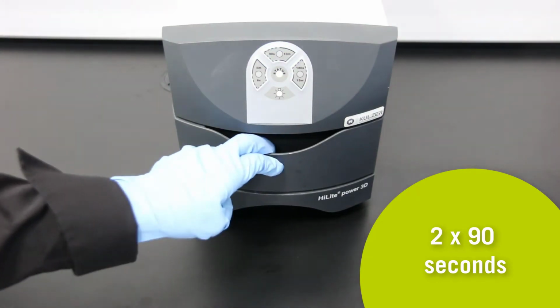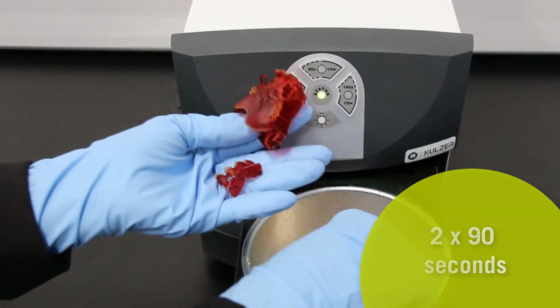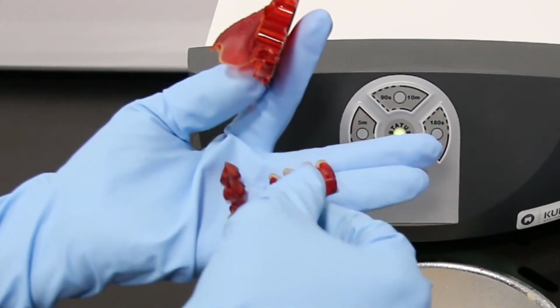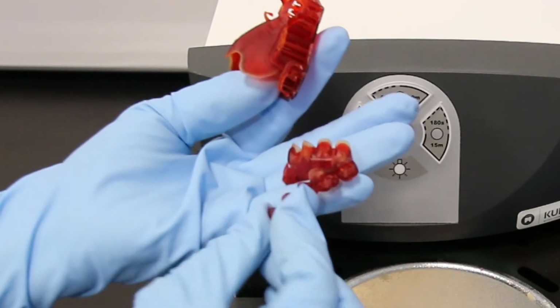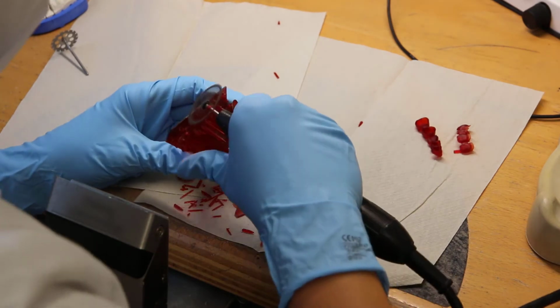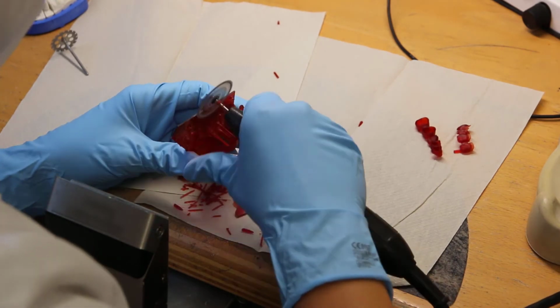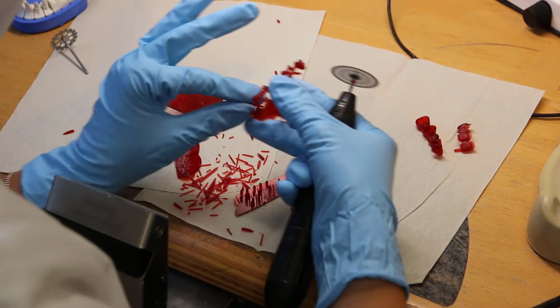Please refer to the instructions for use in the application guide for all materials. Now all objects are ready for further processing in the casting technique. Please note the recommendation to process all printed objects on the same day if possible. Then you will achieve the best casting results.